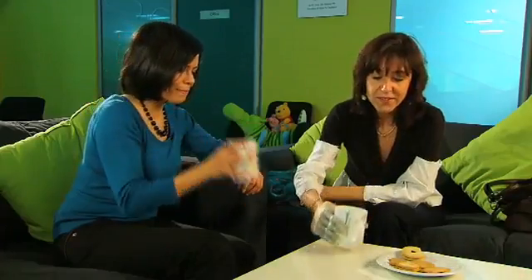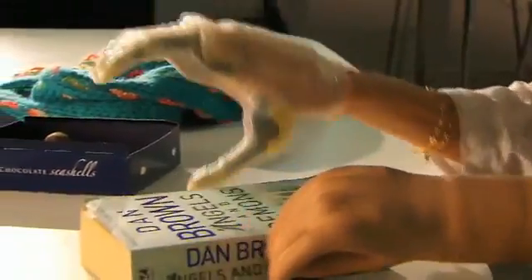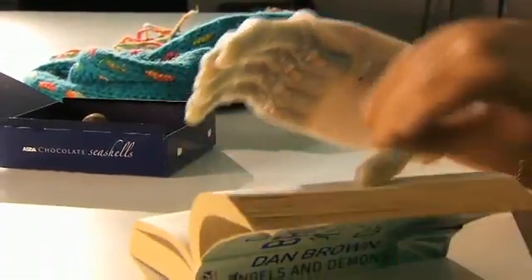This hand has made a real change in my life. I feel that I can do things I couldn't do before. Also that I feel safer and more secure in what I do, because I have the ability now to be able to complete those tasks.